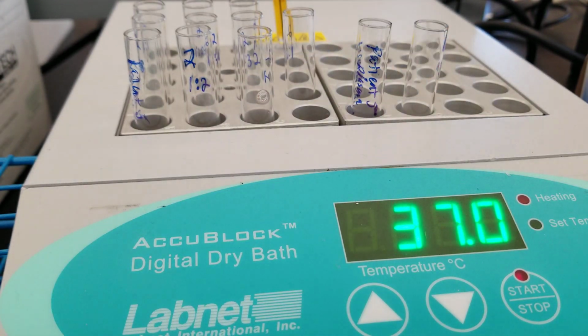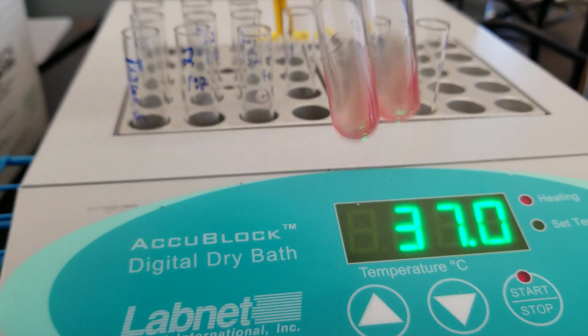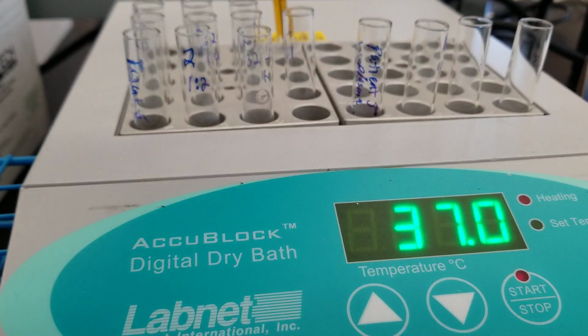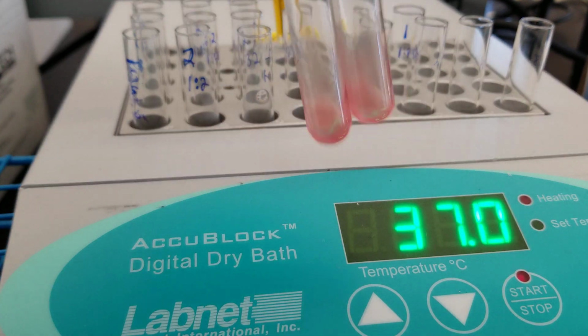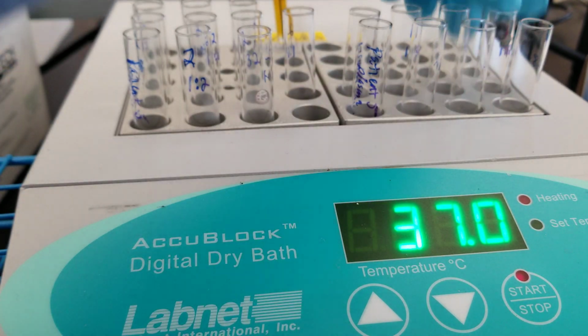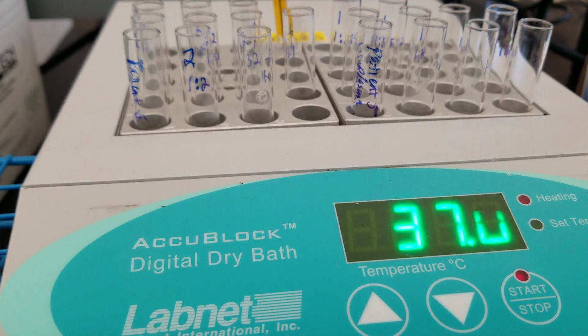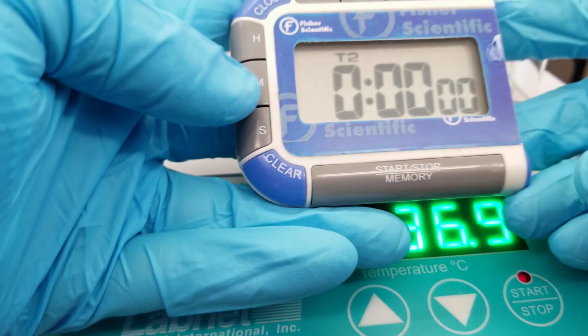The reason we swirl them before we put them into the incubator is because the whole point of this is to try and give them the cells and the plasma and antibody. So the antibody in the plasma and the antigen on the reagent red cell, a lot of opportunity in order to interact and to form a complex if the antibody is present in high enough concentration. Okay, so present at all rather. Okay, so we're going to do 30 minutes on the clock.